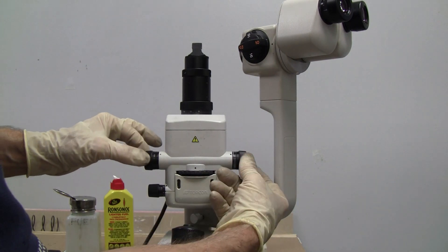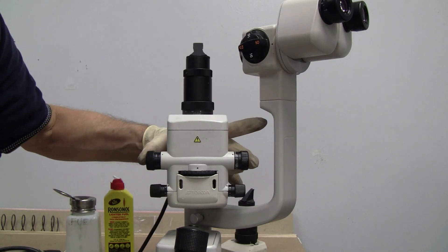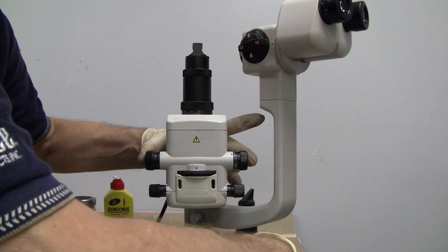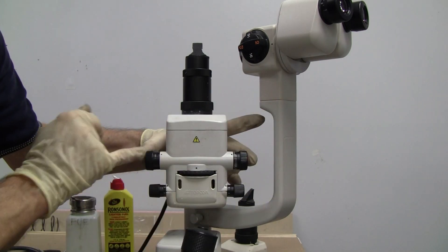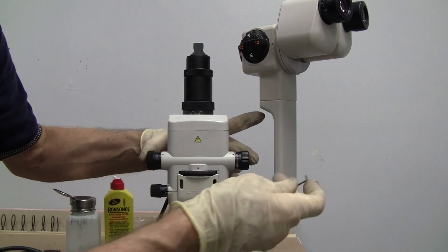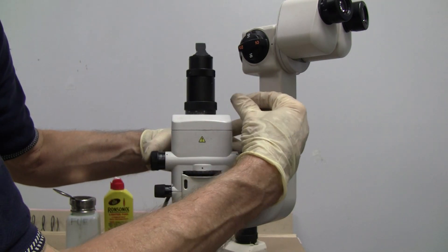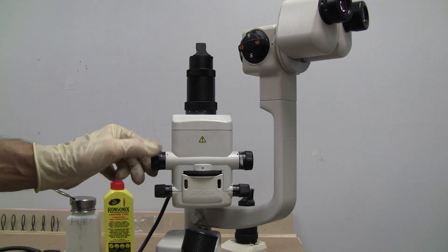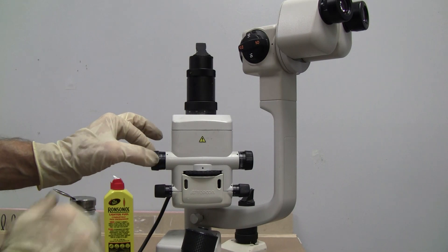And now, I'm going to squeeze, squeeze the handles while I'm tightening. Because it's squeezing this little wave washer, which is the tension. This is the tension side. And as I feel it, I already know it's better. It's not moving at all.